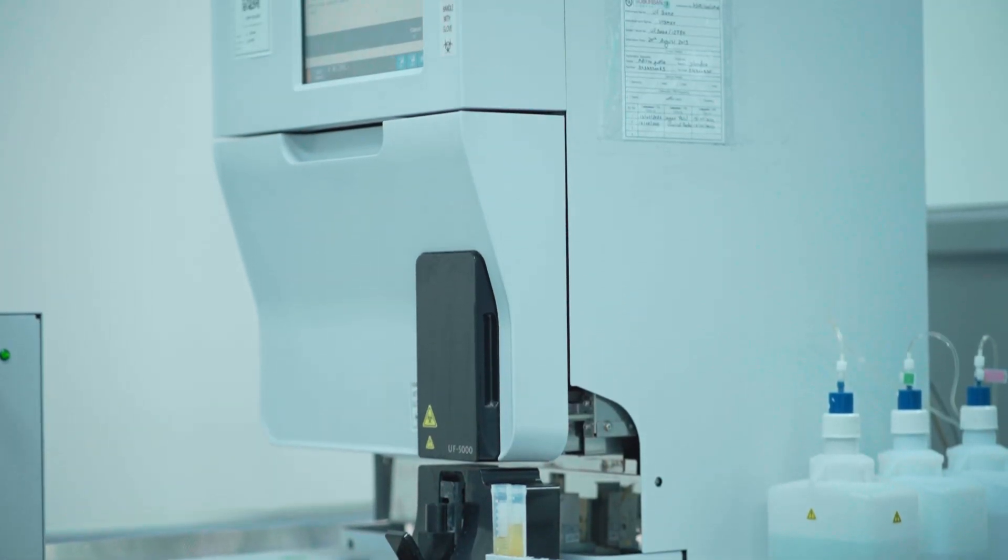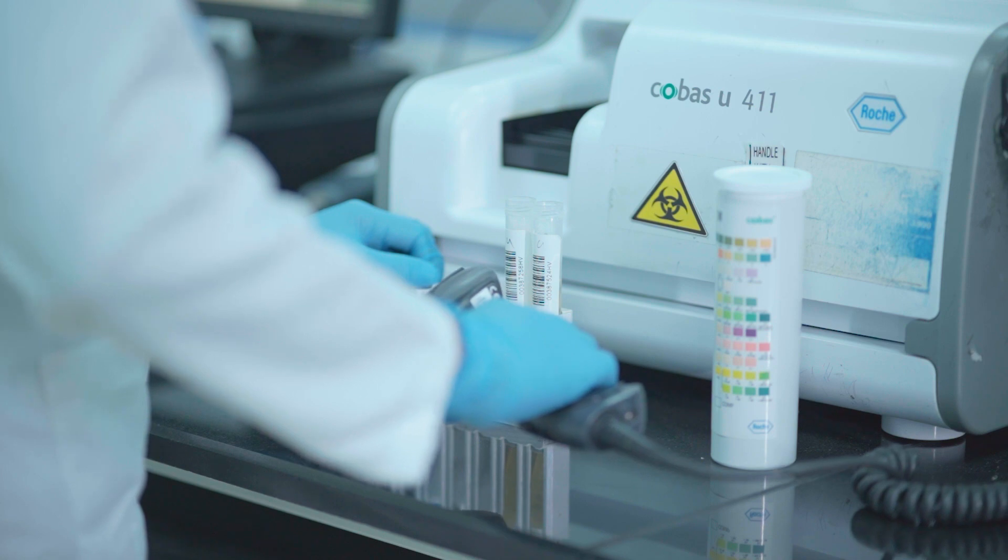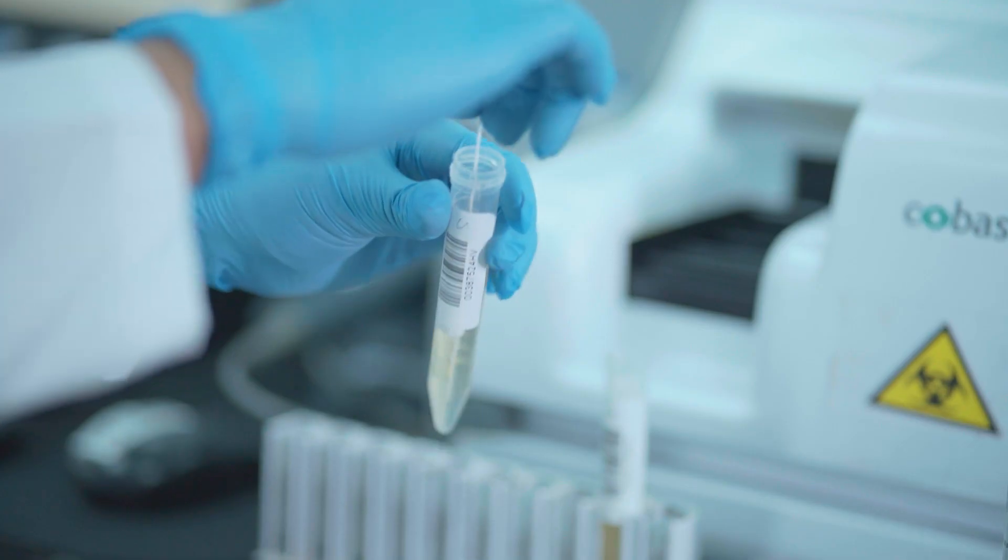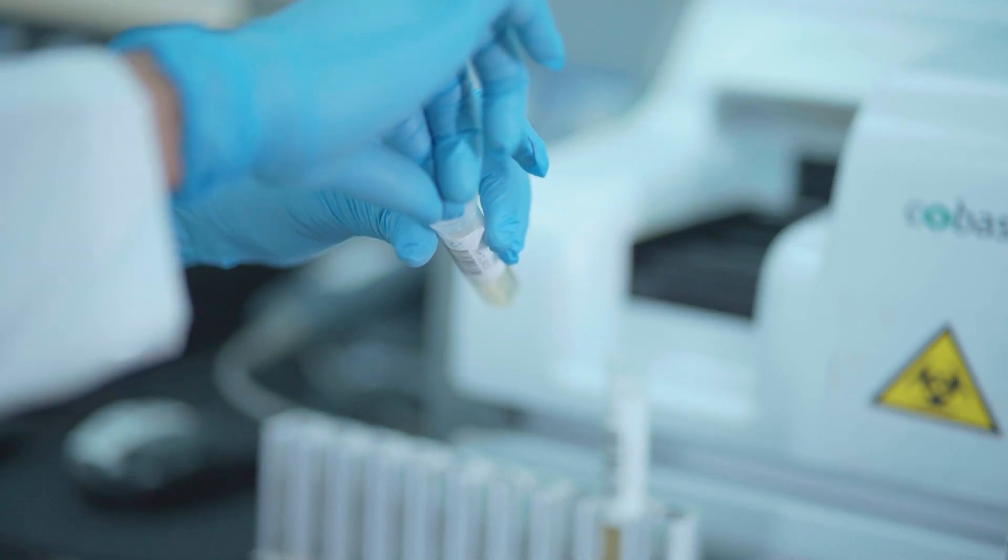Our urine and body fluid analysis is automated with flow cytometry to enumerate urine components with higher precision and accuracy when compared to manual microscopy.